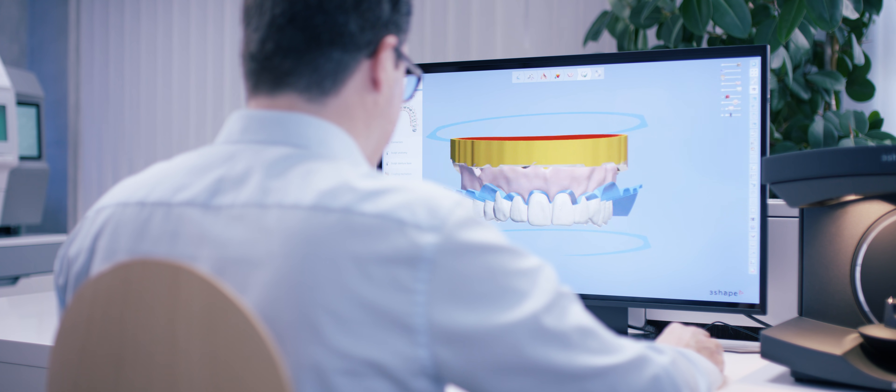iVotion denture system: a finished denture out of one single disc with exceptional efficiency and quality.